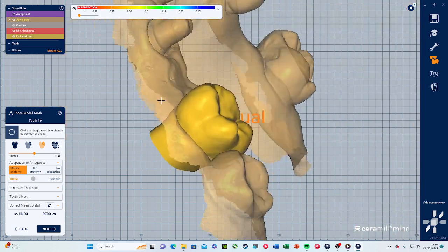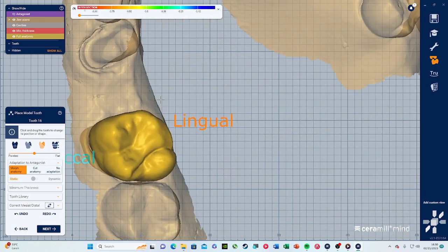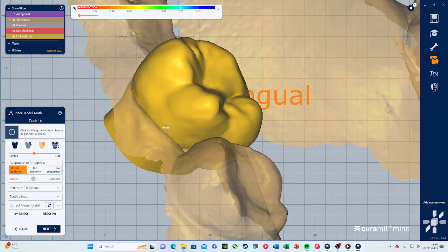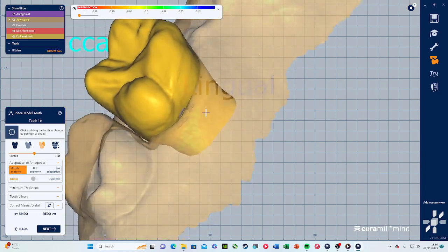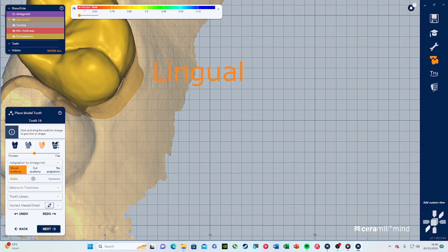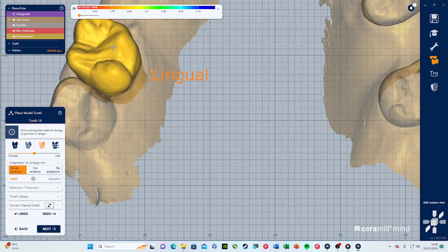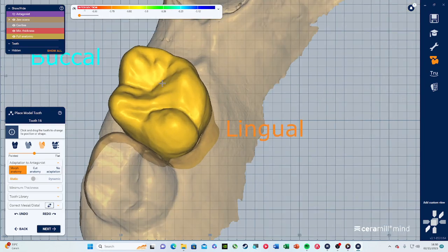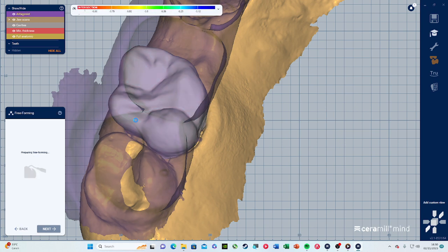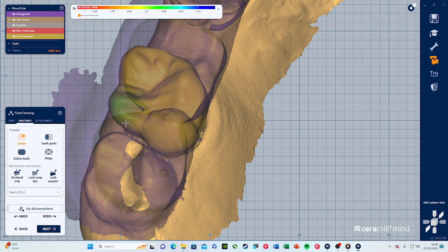You can see these parts are not smooth — there are still a lot of uneven parts, but that can be solved. This step is more about the general shape of the tooth. All those rough patches can be shaped in the next part, a few steps after. Let's calculate this first.